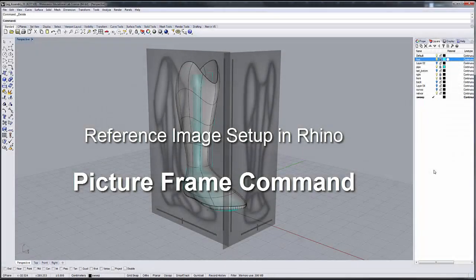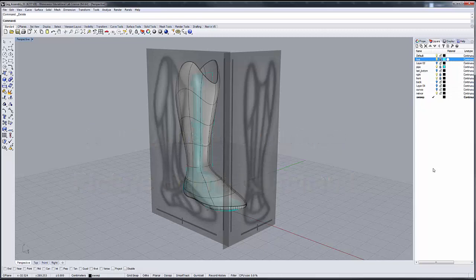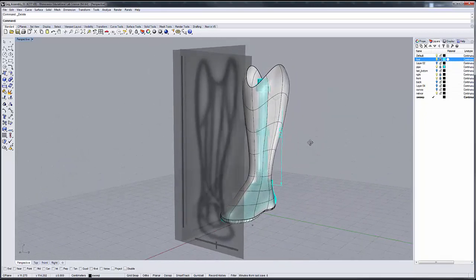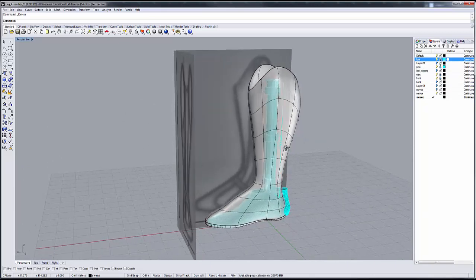In this tutorial video, we're going to go over how to model our prosthetic last — either a below-knee prosthetic or a boot last. In this case it's a boot last for our prosthetic cover. I'm going to go over how to use the picture frame command within Rhino to bring in reference images that you can use for modeling. I'm going to break the tutorial up into smaller parts so that you can deal with each step individually and see how the process and workflow works.